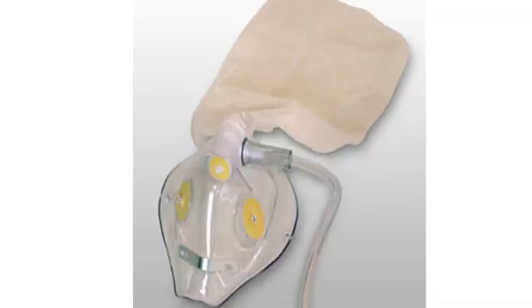Moving on to photo number 4, take a look. Here is a hint before you decide on your answer. The exhalation ports have a flap over on each side.